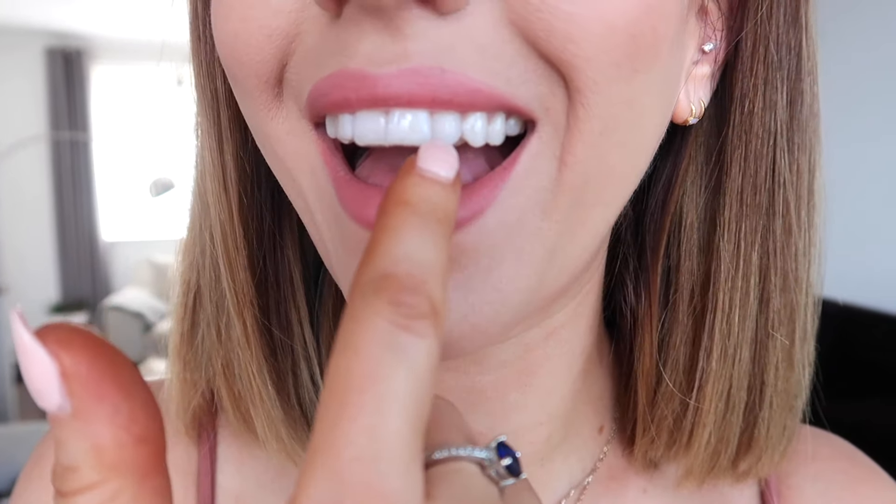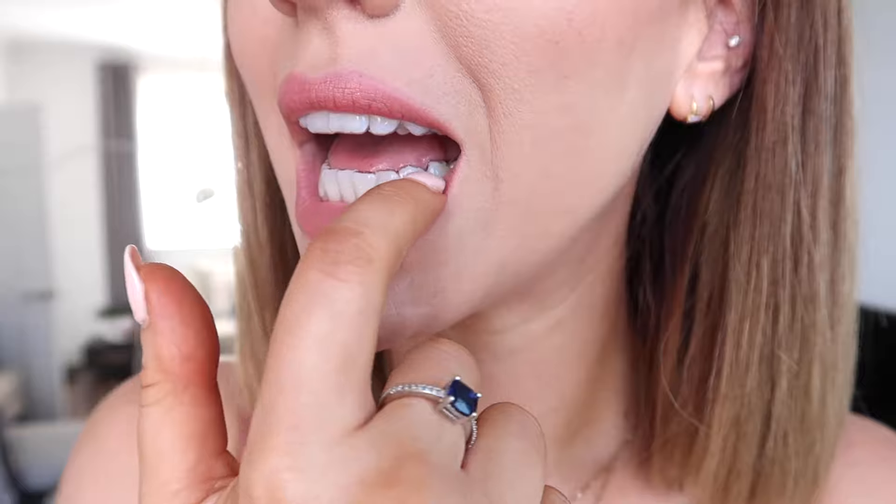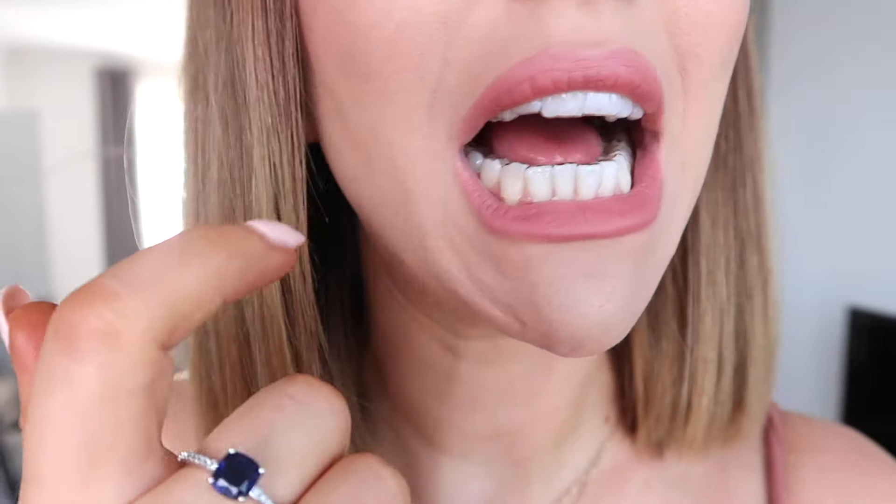You can see that my aligners up close are really close to my teeth. I suppose that's what happens when you do a really good mold - it took me a few tries, as you'll know from my other video. Producing a good mold has made the aligners almost unnoticeable against my teeth. They don't cover the whole top of my front teeth because I've got quite big front teeth, but that's not a problem at all since the aligners are clear anyway.